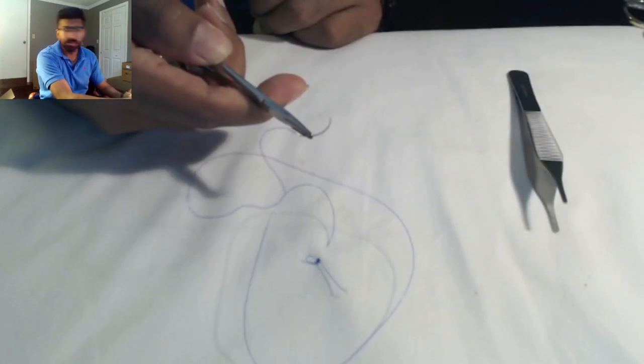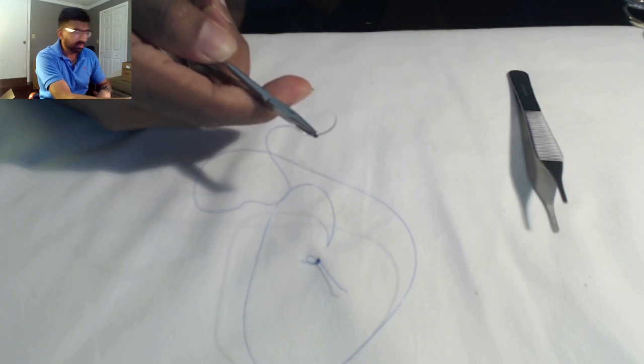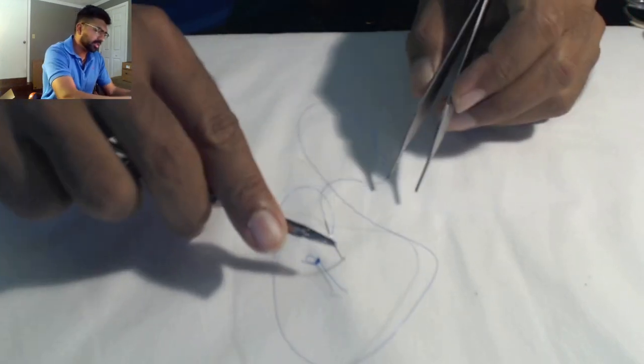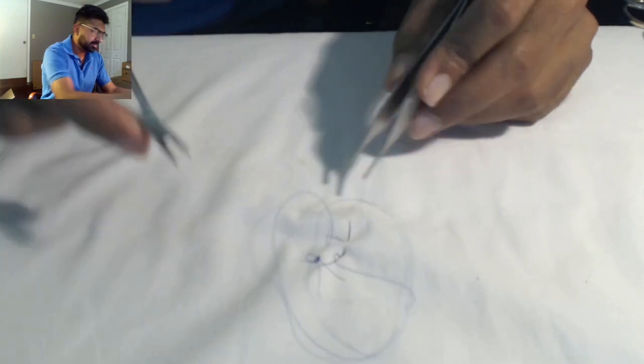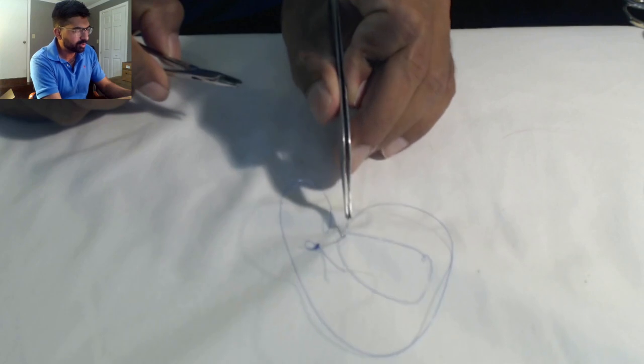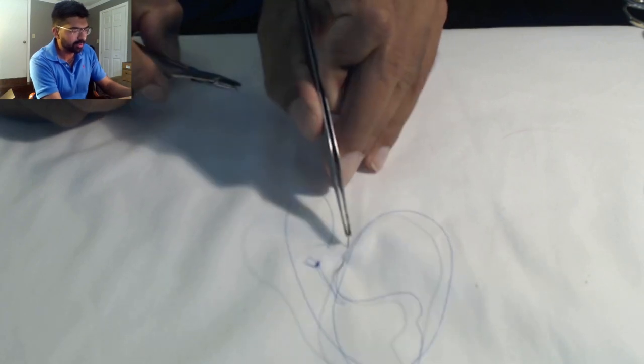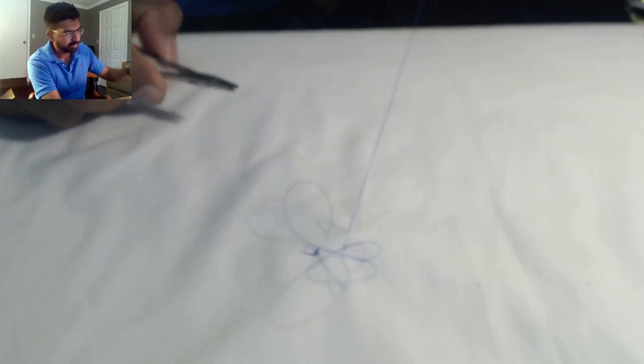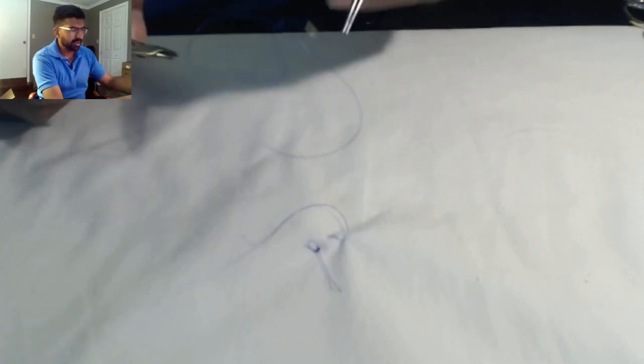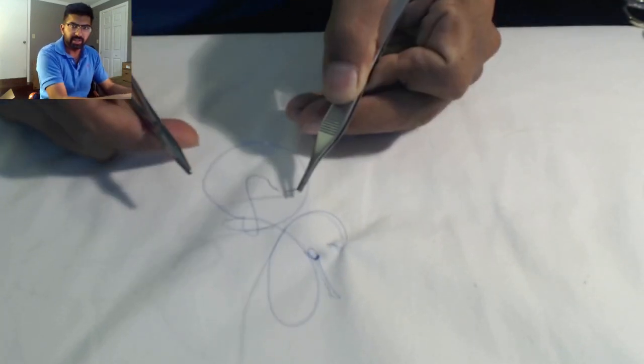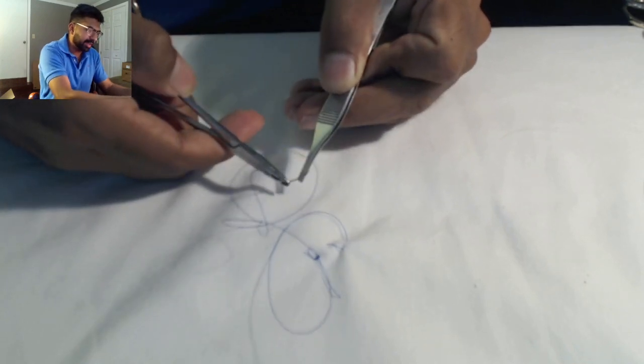Number two is the way I see most people do it: pick it and stick it, or using the pickup for the rest of the bite. You take the bite, then most people will just grab it. Remember, as you grab it, you want to use the curve of the needle. I'm not just pulling it out, I'm using the curve of the needle to guide the suture and needle out. Once it's in this form, you let your hands relax and get your needle driver back there.